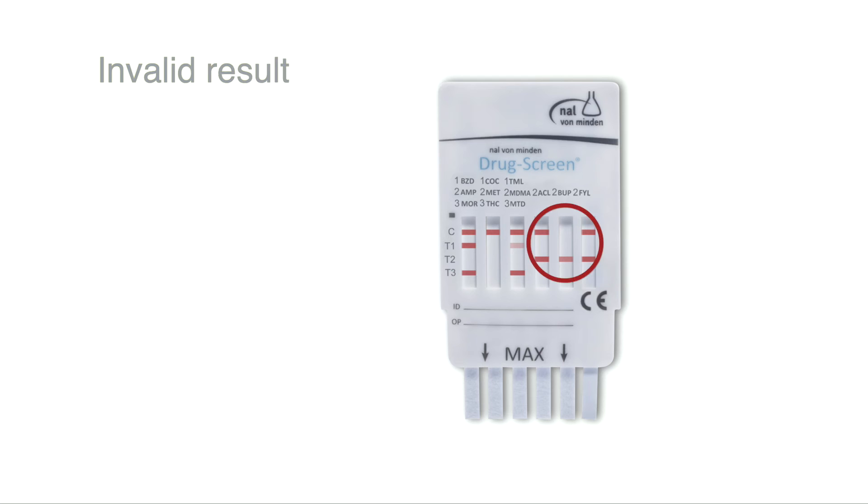If no control line appears, the result is invalid. Repeat the test with a new test device.